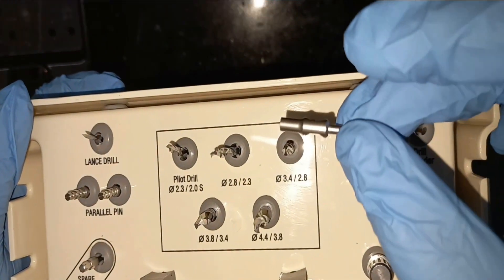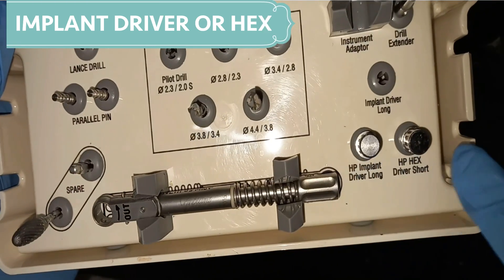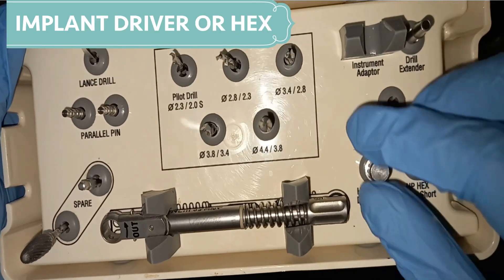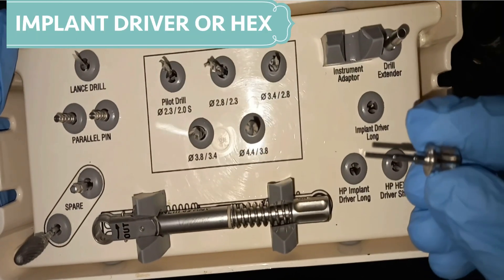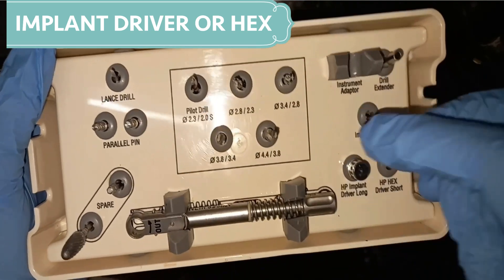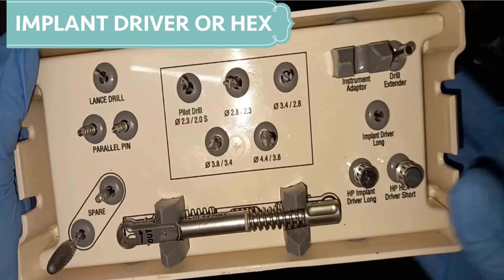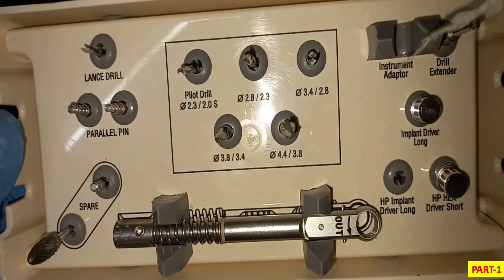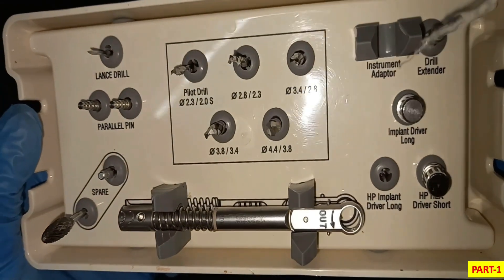Then we have a drill extender to extend the length of the drill. Then we have an implant driver, also called a hex, available in two sizes — short and long. The function of the hex or implant driver I will tell you in the next part, because the ratchet and the implant driver are very important at the time of implant placement.